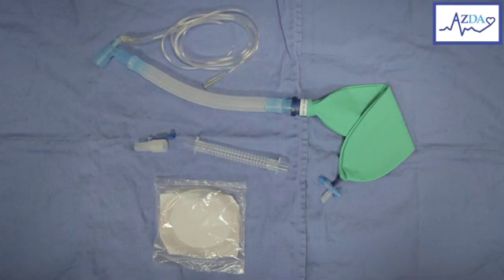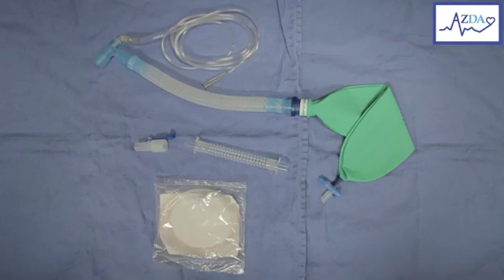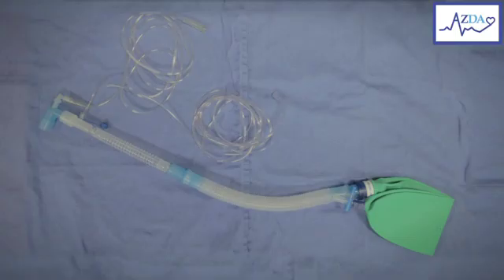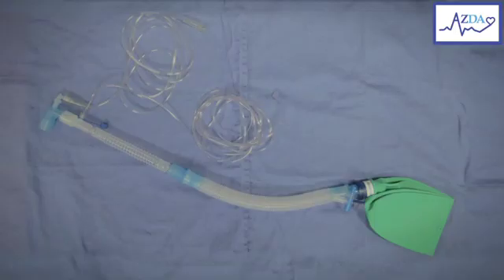In the second picture you can see the additions or modifications that are made to the circuit. We are adding a capnography connection with the capnography line, as well as a 5-inch extension. You'll see why this extension helps later in the video. In the third image, you can now see the semi-open circuit in its final form, ready to use in the dental office setting.